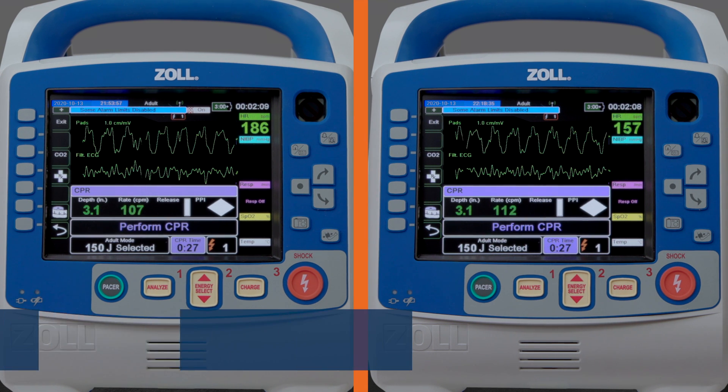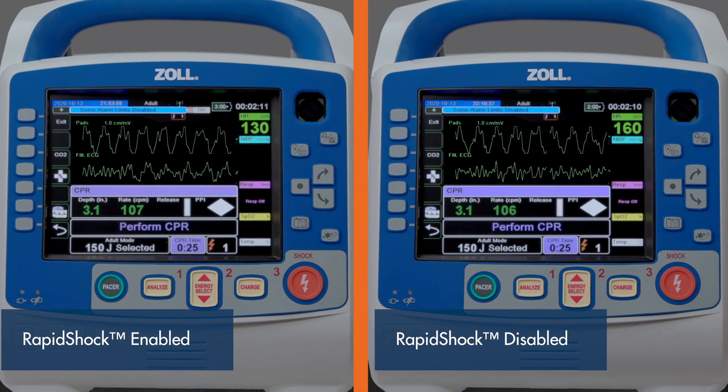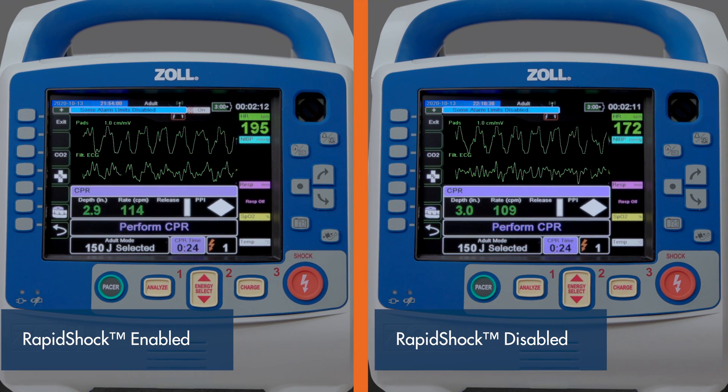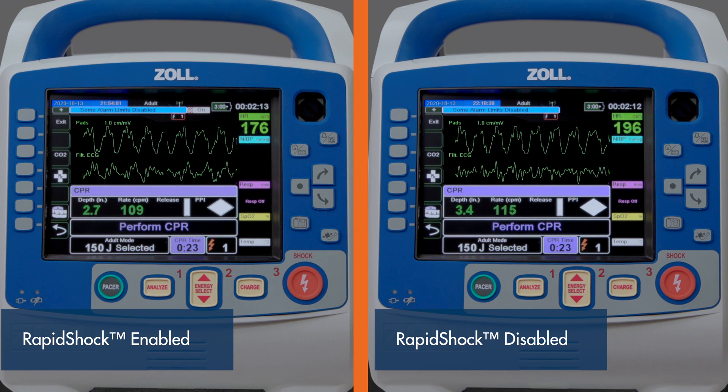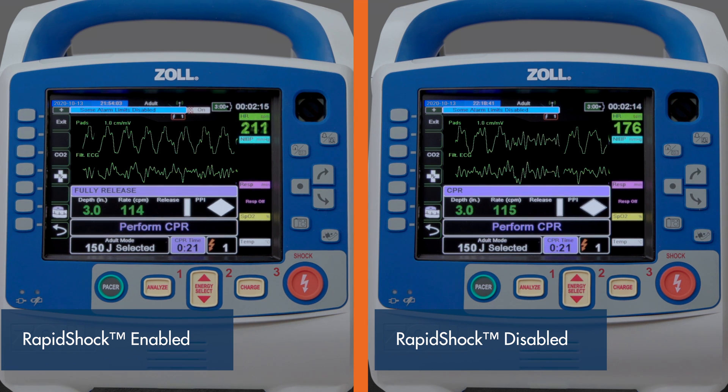In this side-by-side comparison, all settings, timing, and methods of simulation for each of the devices are identical.